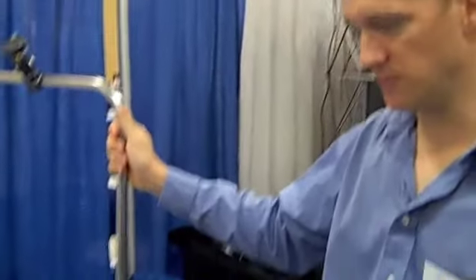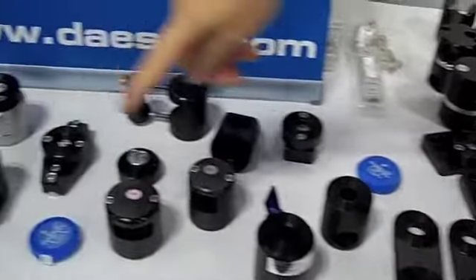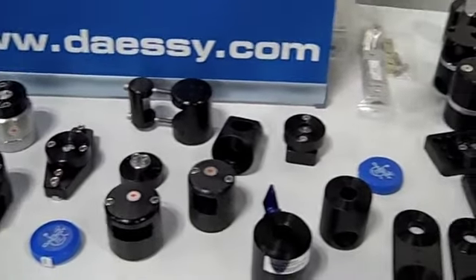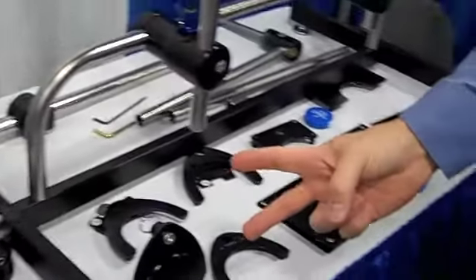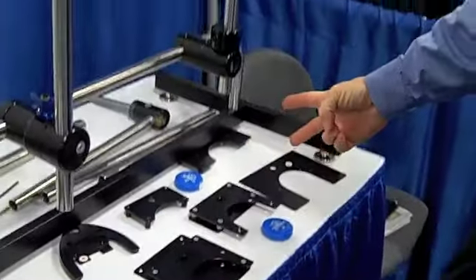As you can see on the table we've got a huge variety of different parts. Most of the ones over at the left here are different clamps for attaching to a wide variety of different wheelchairs, and then various other moving parts and different adapter plates to attach to different devices. So you're not restricted to just buying a mount as a kit — you can take a mount and make it yourself with a variety of components. It's modular, component-based.